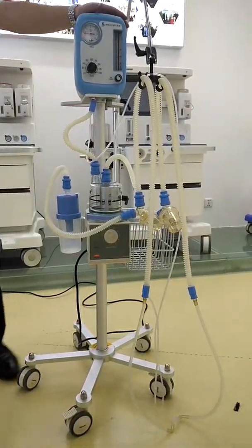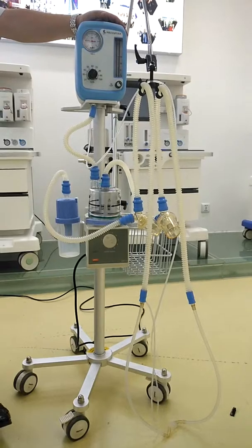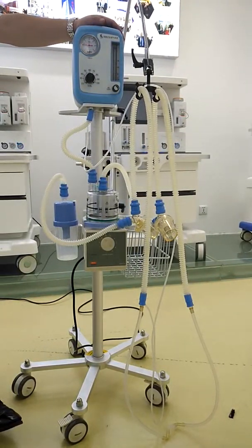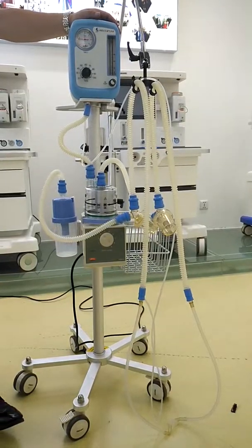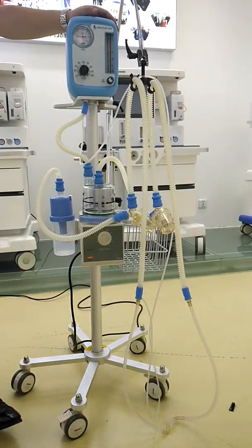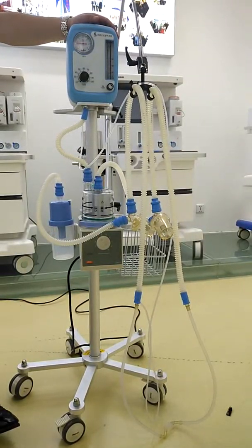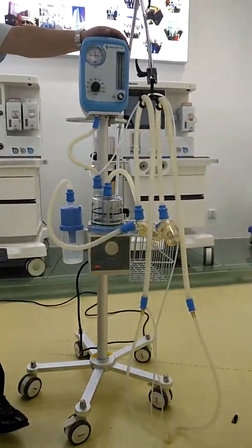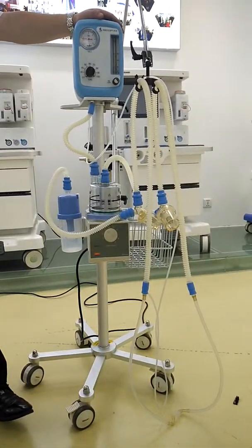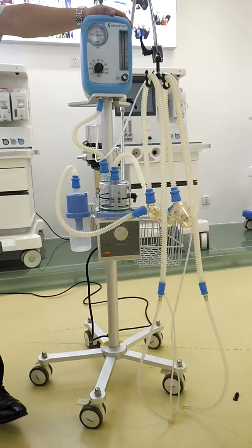For this machine, the only part that needs AC power is the humidifier. You can connect the humidifier with AC power to use it. Usually if there is no AC power, you can still use the machine because it's a mechanical ventilator. Even if you stop the humidifier, it won't influence the use of the machine itself. This is the basic function of this machine.